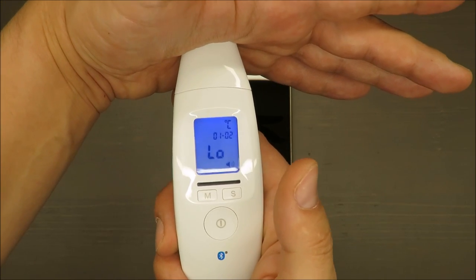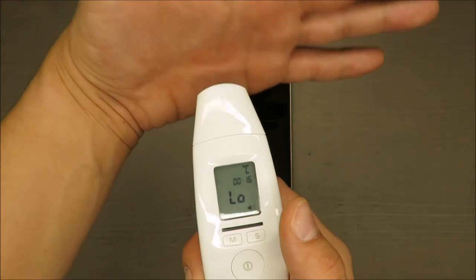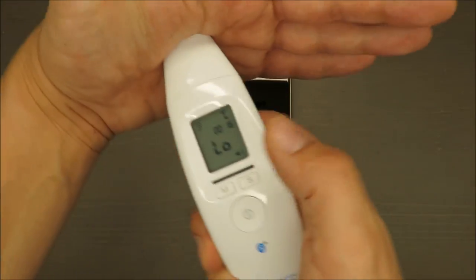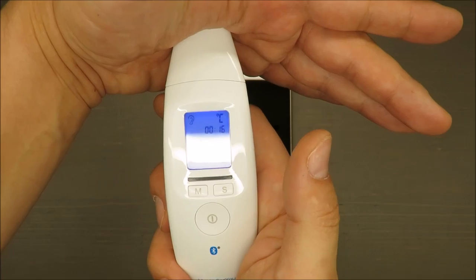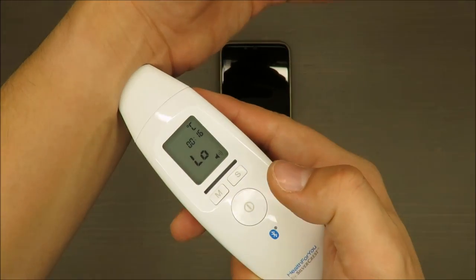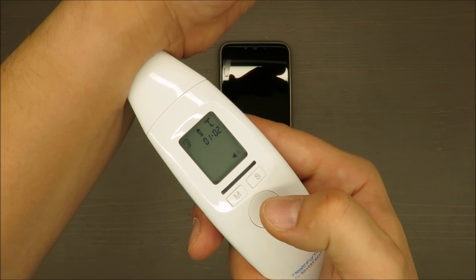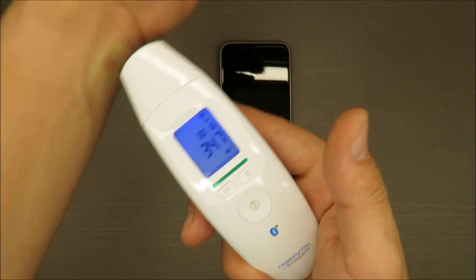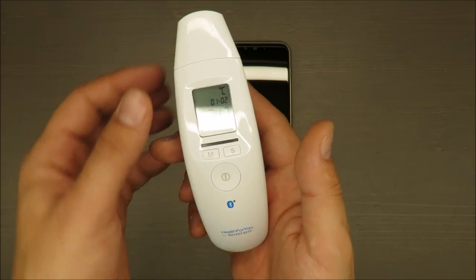And now it's way too low. So I will try the same spot again, it's low, different part. I will try the same spot again: 34.7.